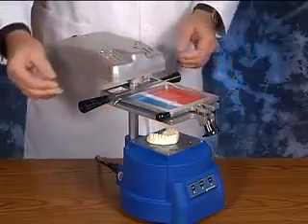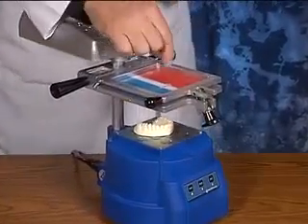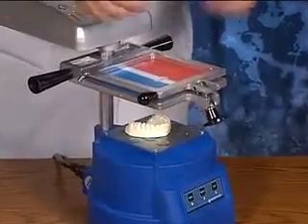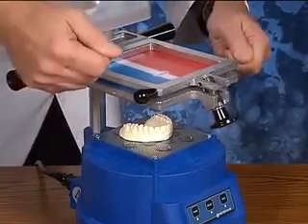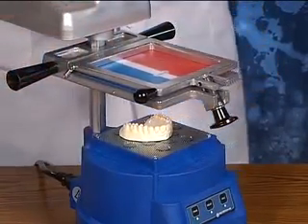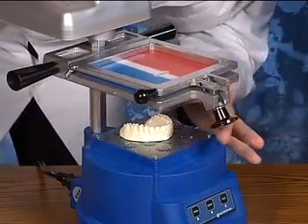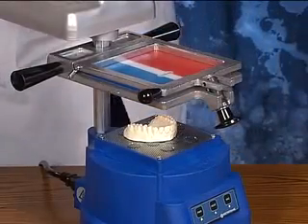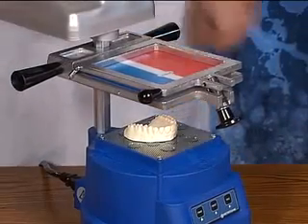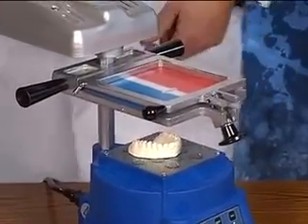For time's sake I've already positioned the stick pin in the center of the logo, and I've already lowered that logo onto the model and have it positioned where I want the logo to lay. At that point I would just pull that stick pin out — it's just a slight indentation, it's not going to affect the product whatsoever as far as the way it vacuum forms.